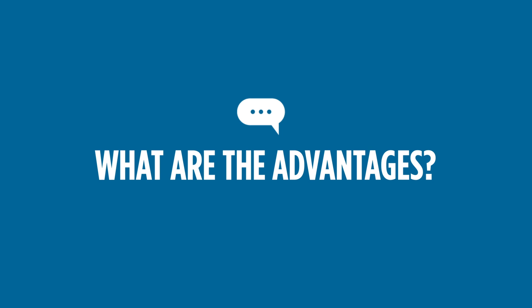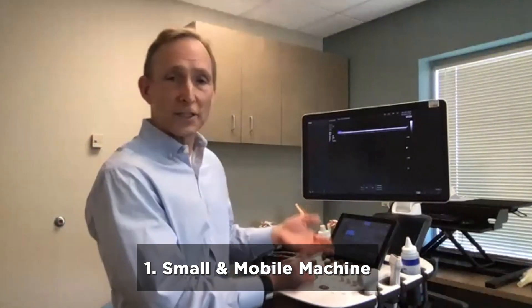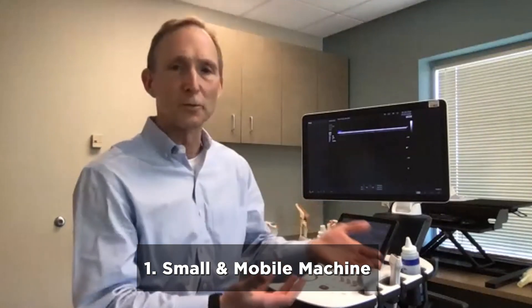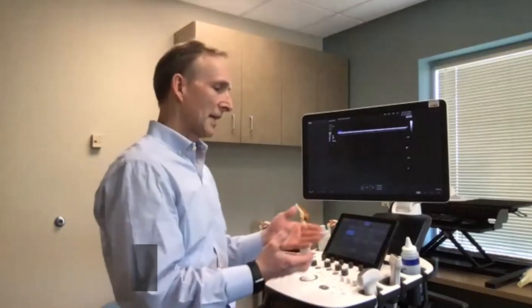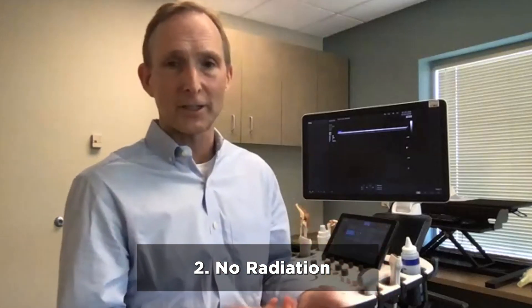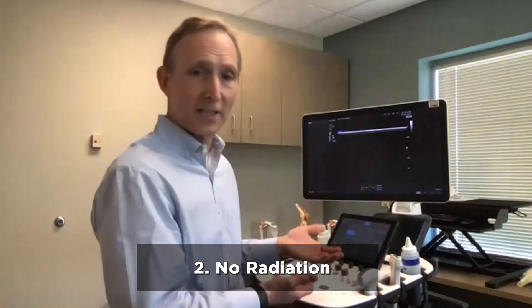In my opinion, there are several advantages to using musculoskeletal ultrasound in an orthopedic practice. First, you can see this machine is quite small and easily mobile, so I can move it from room to room and see patients relatively easily. Second, it doesn't use any radiation, so ultrasounds are actually harmless to patients, with no adverse effects to this type of technology.